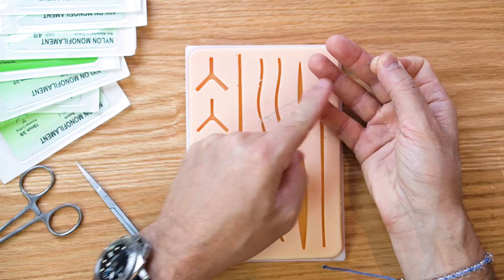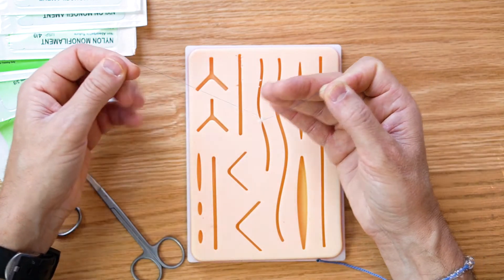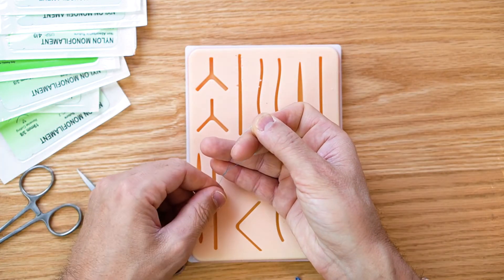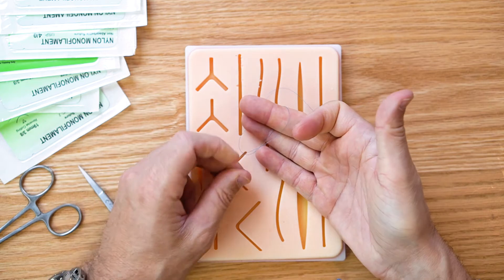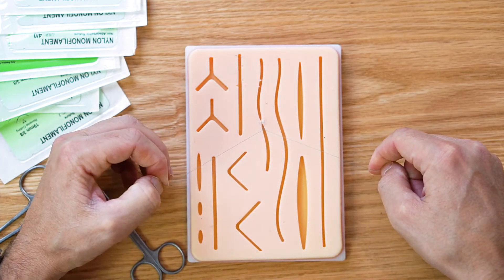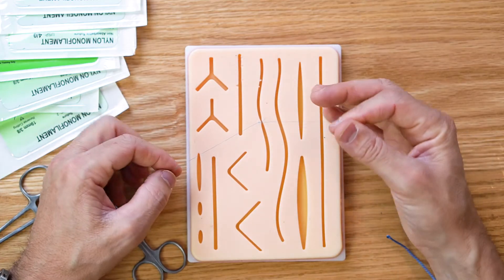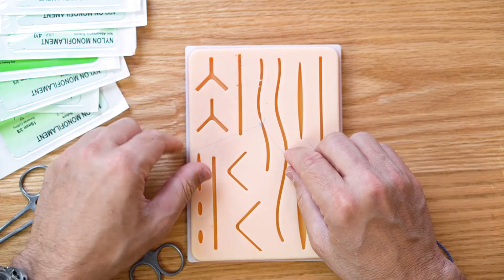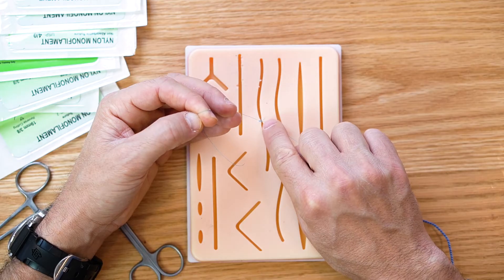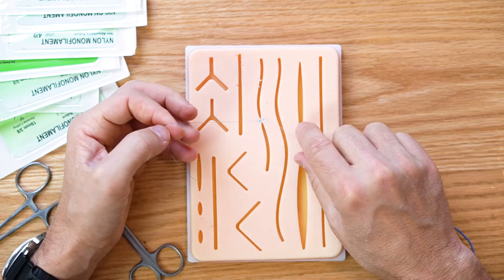This is how you start: you have the suture in your thumb and index, with it laying across your other fingers. What you're going to do is lay this across as well — so you make a cross — then pull this around in and around. I use this middle finger — you give somebody the middle finger — that's why I like this one. The middle finger comes in and it sweeps, gets caught, and you pinch the suture between your middle finger and your ring finger and pull it in. Now you see that come down. To make this knot secure, do the same one again. The trick to pulling this down is to have the left hand up if you're doing the right-handed knot, and then this right finger pulls it down and tightens it up. Pull equally away from the knot — if you pull one side too hard, the knot's going to pull out of the tissue.